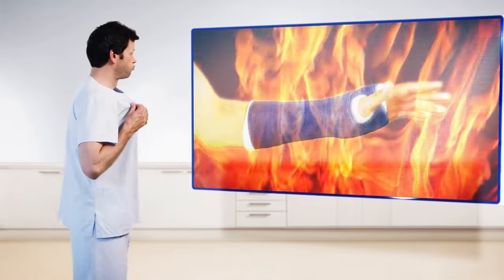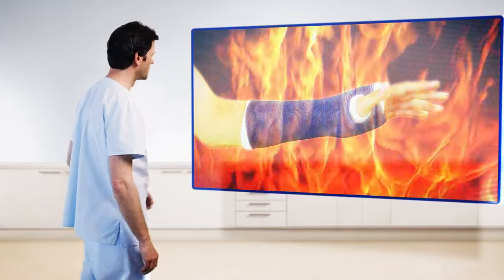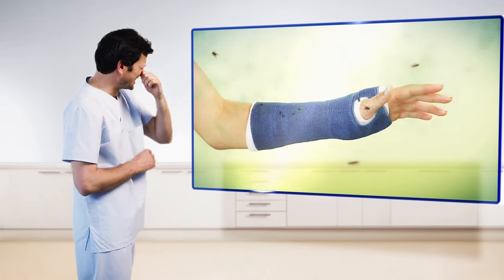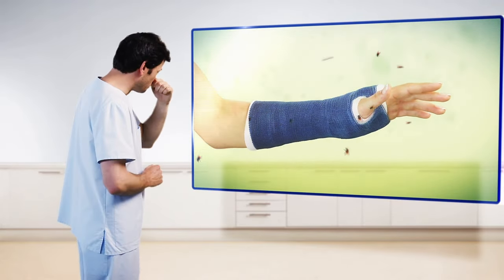And under the cast, it can get quite hot. Dirt, heat and sweat make wearing the cast unbearable and may produce a nasty smell.